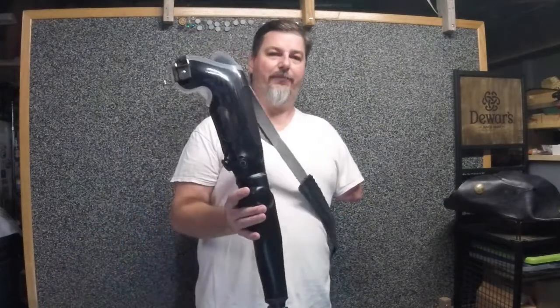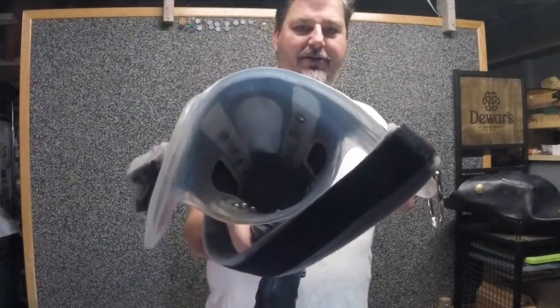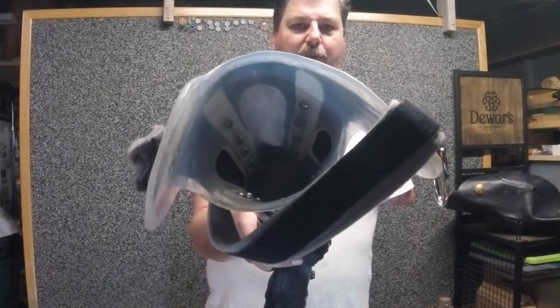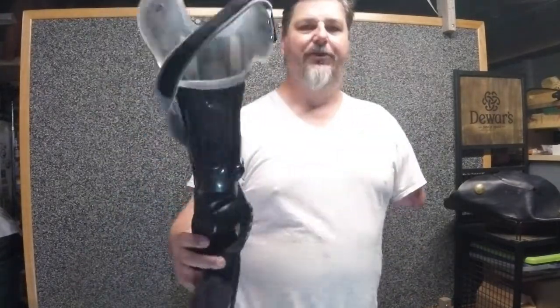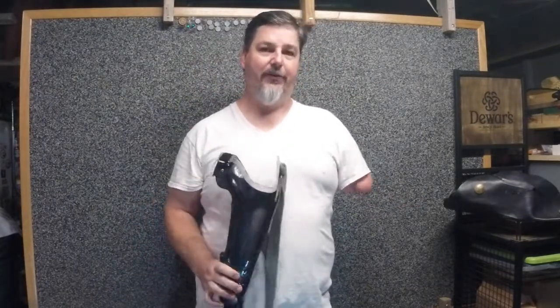I'm back here to show you what I go through in my process to don my prosthetic arm. Donning means put it on. So this is my prosthetic arm. They are going to range a little bit differently. Here's the inside. As you can see on mine, I have little archways and openings, and in the archways I have sensors on all four sides. I want to be able to put on my prosthetic arm so that those sensors line up on my arm pretty much the same way every time. Most prosthetic arms are going to go on fairly exact each time, but there is a little bit of movement that can occur within the arm depending on how it fits, your length of amputation, and many other factors.